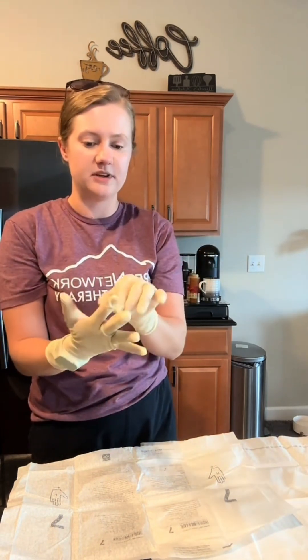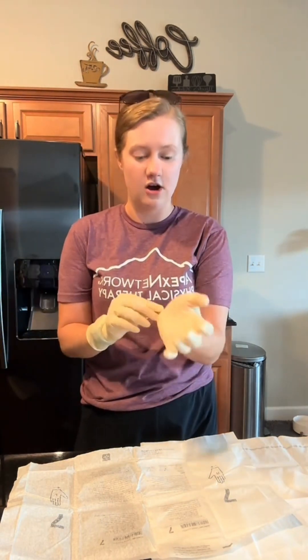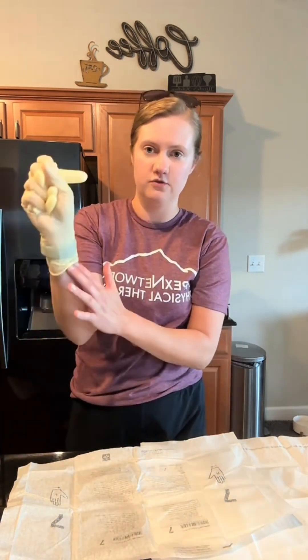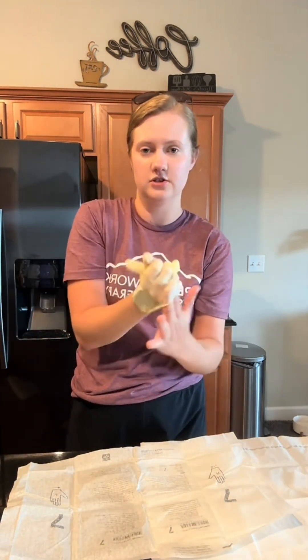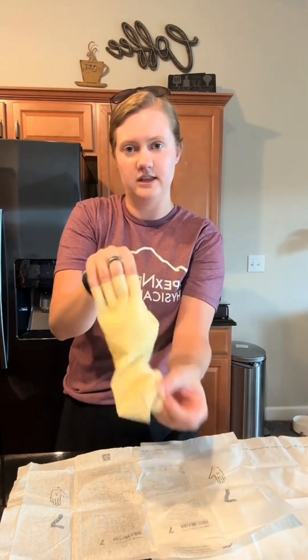I'm going to pull back down, and then I can use this glove to adjust the other one where it's messed up. If my fingers are messed up at all I can use this to adjust them too. For my demo I also have to take these off, so if you've never taken gloves off: you just grab here, pull away from you, and bunch it up in the other glove. Then put two fingers under this glove, turn it inside out, and take it off away from you — then just throw those in the trash.